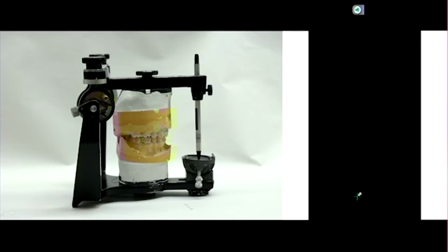So you've got the 2 black ones on top. What does that allow us to do? Adjust our condylar inclination. How about on those parts, you've got another knob, silver knobs, right? What does that do for us? Do you guys remember the term immediate side shift? So your condyles, in theory, some people believe that you can just move laterally to the side. You can adjust the amount of immediate side shift by unscrewing those and sliding that bar.